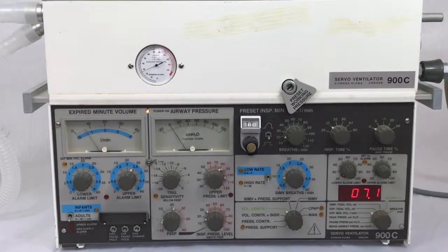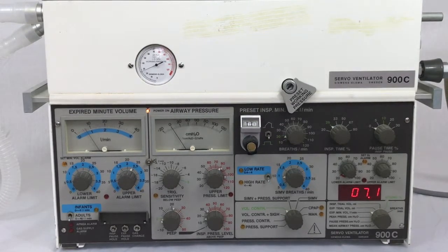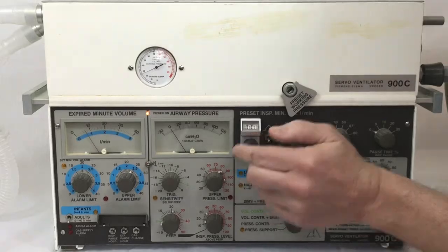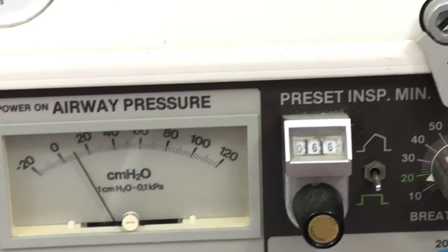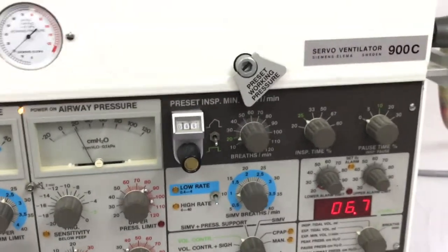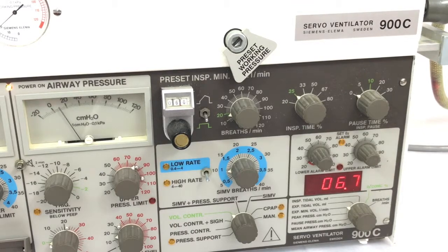On my Servo 900C ventilator I have a minute ventilation setting, which I'm pointing out here, along with the measured minute ventilation value. I'm going to adjust this to 6.6 liters per minute. Zooming in on the minute ventilation setting, you can see it is set at 6.6 liters per minute. Zooming back out to show the measured value, it reads approximately 6.7 liters per minute. My minute ventilation is now precisely set.